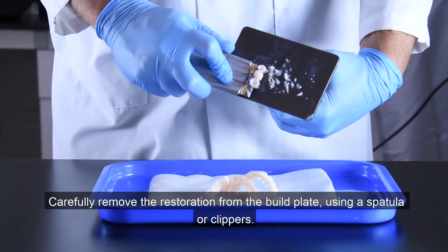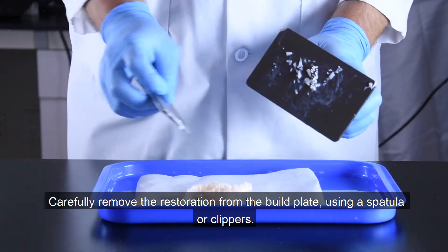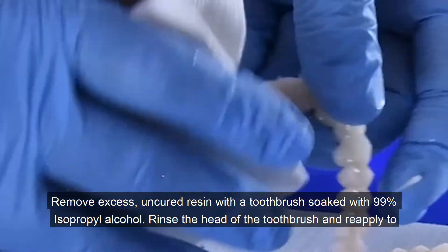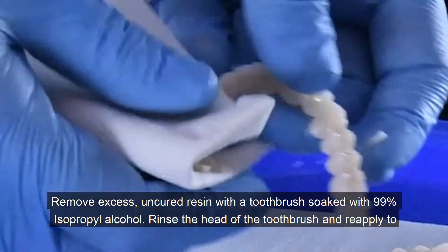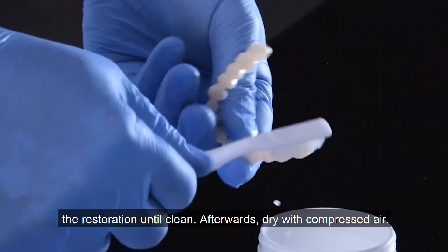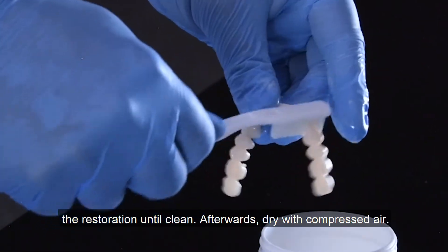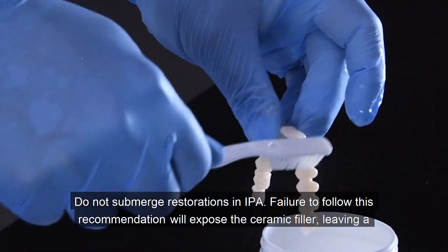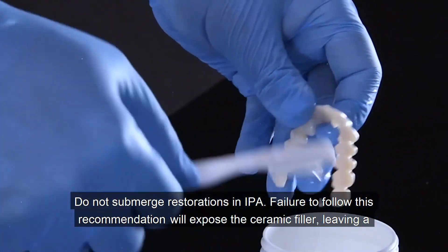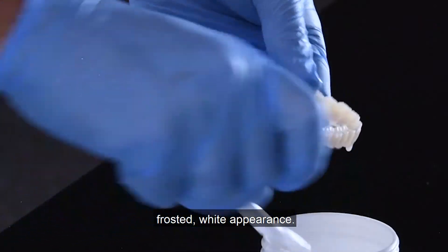Carefully remove the restoration from the build plate using a spatula or clippers. Remove excess uncured resin with a toothbrush soaked with 99% isopropyl alcohol. Rinse the head of the toothbrush and reapply to the restoration until clean, then dry with compressed air. Do not submerge restorations in IPA — failure to follow this recommendation will expose the ceramic filler, leaving a frosted white appearance.